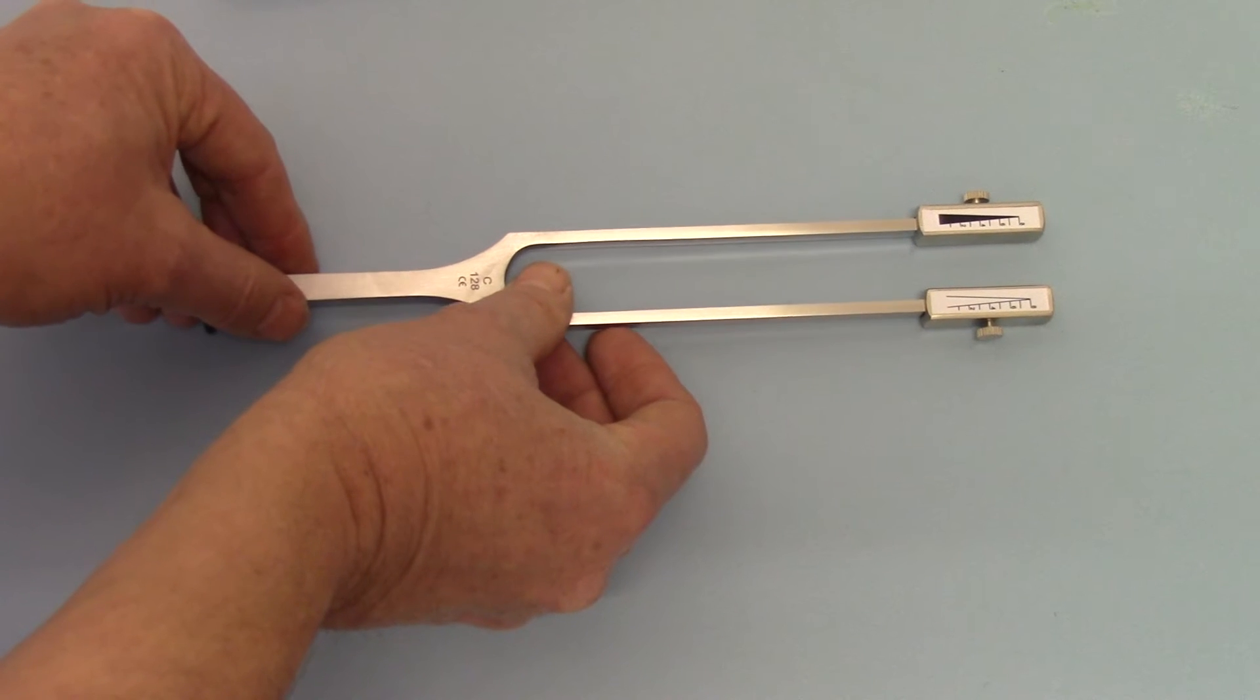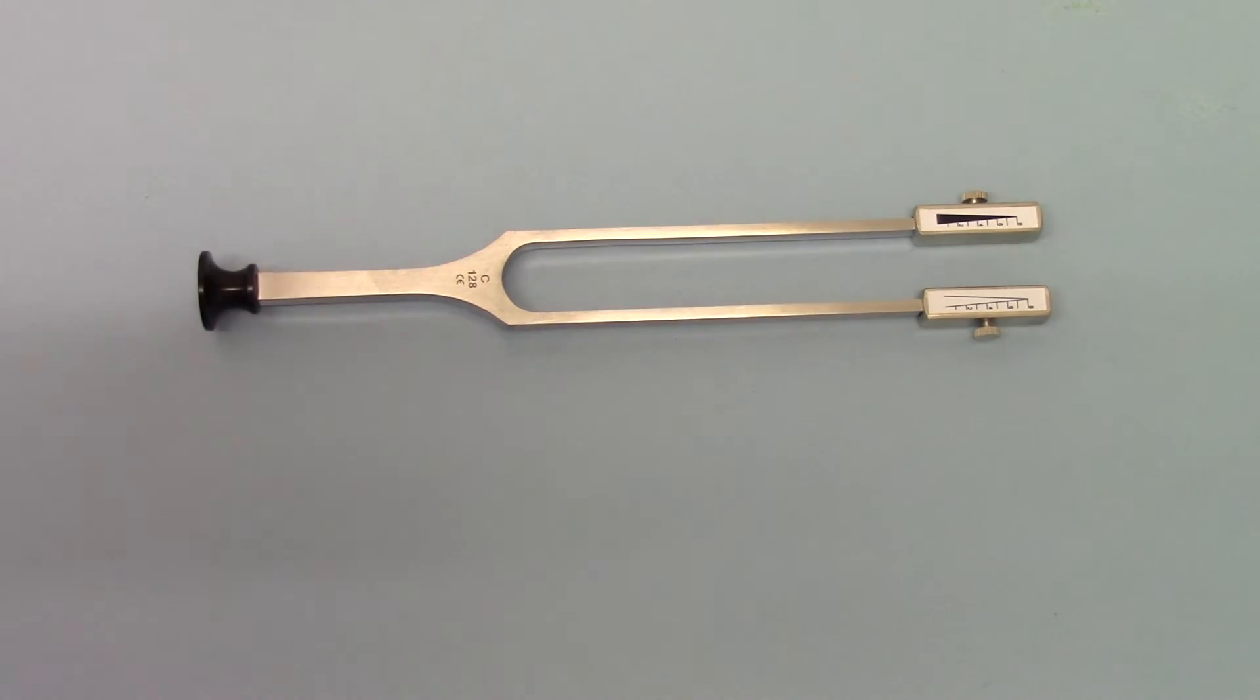And if I just put that down, it should stop it vibrating. So there you have it, German steel, nice heavy construction. I think we measured these in at 24 cm total length, 130 grams. Very good quality precision made item which should basically last a lifetime of clinical use.